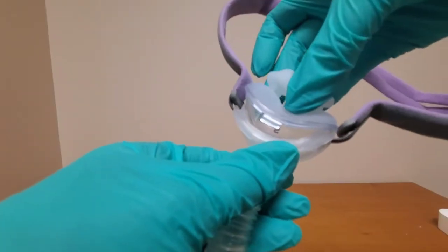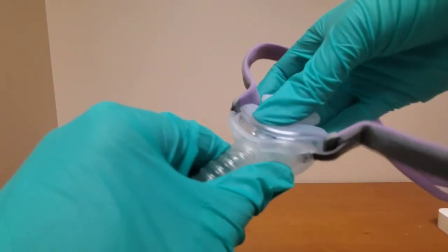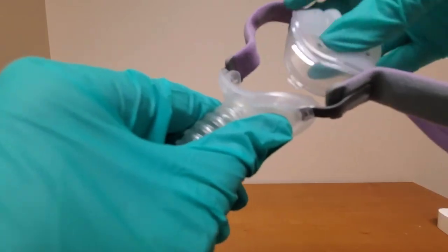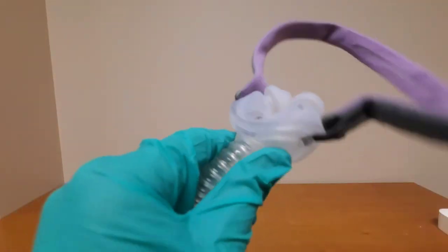When you put this back on it only snaps on one way so if it seems to be giving you trouble just flip it around and try again. Now let's get our mask on.